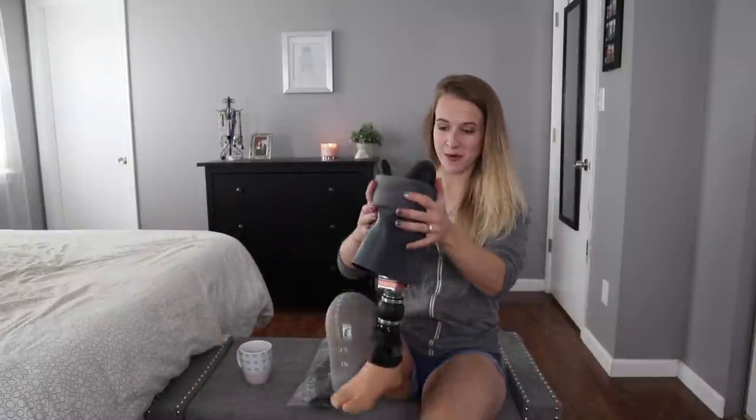What I am holding in my hand here is a prosthetic sleeve. If you didn't know, I'm missing a foot, and this part right here is called a sleeve. It's what helps keep the suction in my leg and allows me to walk. I'm very grateful for it, but there is a problem — it's very good at springing holes, and this becomes a problem because when this has a hole in it, every time I walk I hiss out air and it's embarrassing.